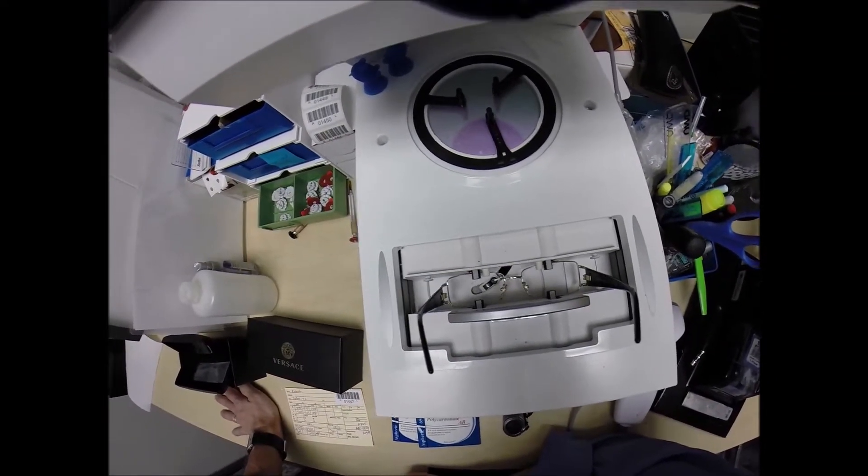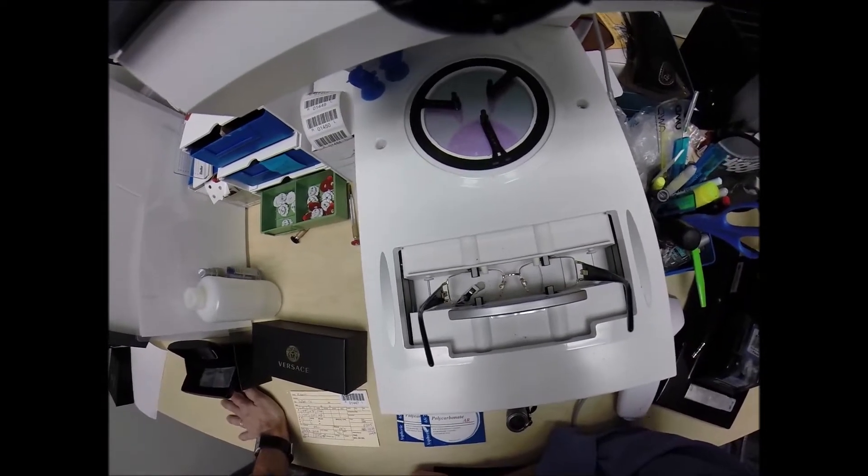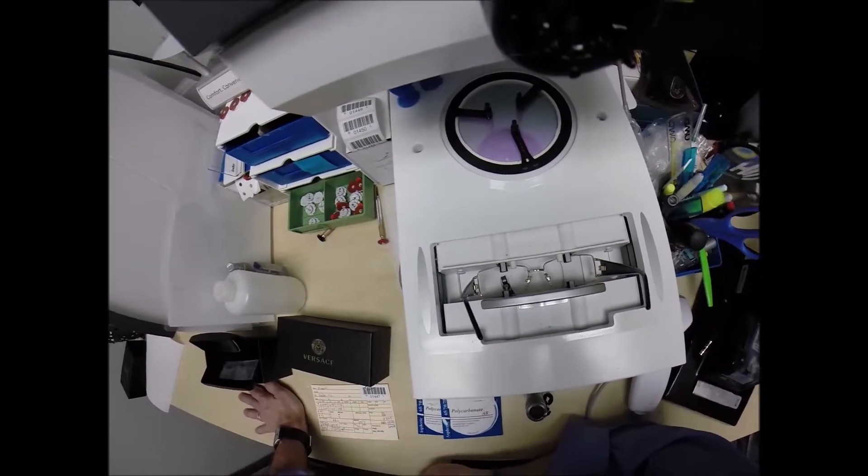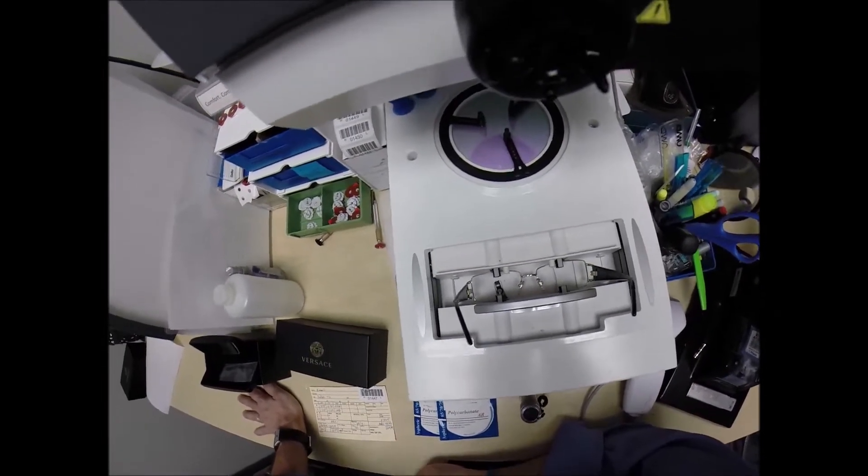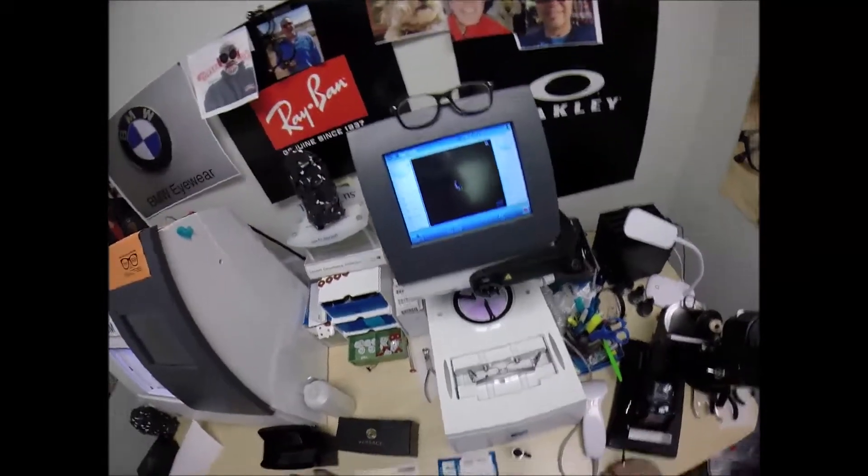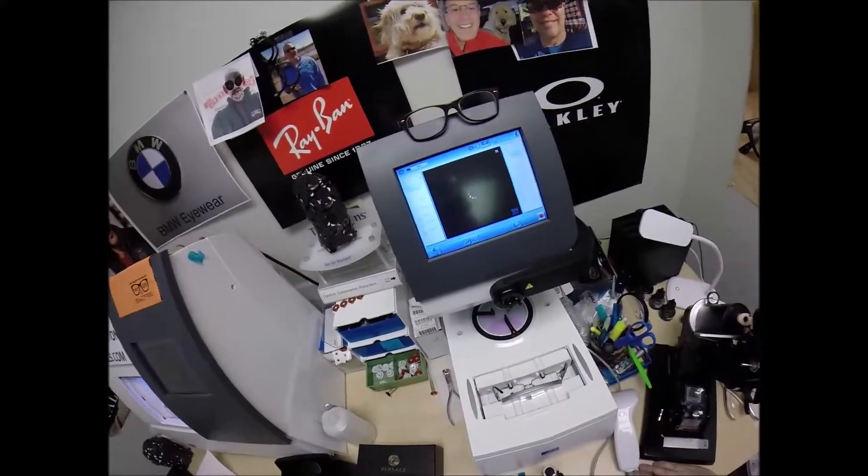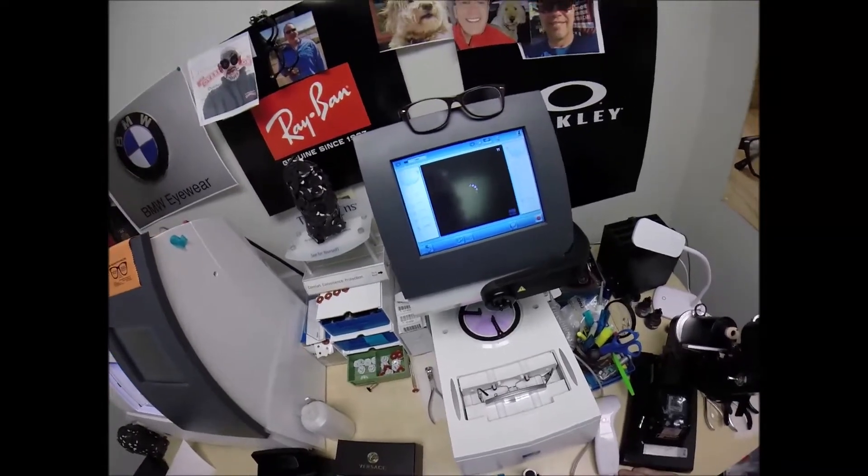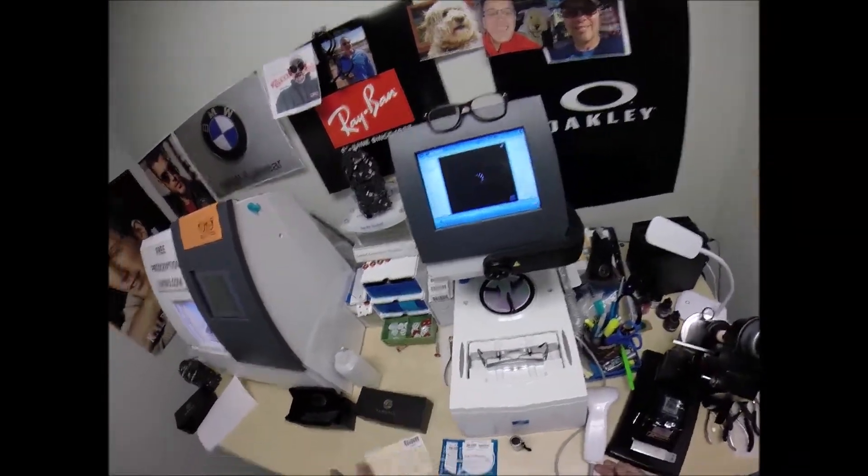A little stylus is going to pop up and go around and trace the inside bevel of the right side of the frame before doing the same thing on the left here at freeprescriptionlenses.com, where everyone loves a bargain and no one is disappointed in quality. You buy a genuine, authentic Versace frame and you'll receive one free pair of clear single vision prescription lenses or non-prescription fashion lenses.